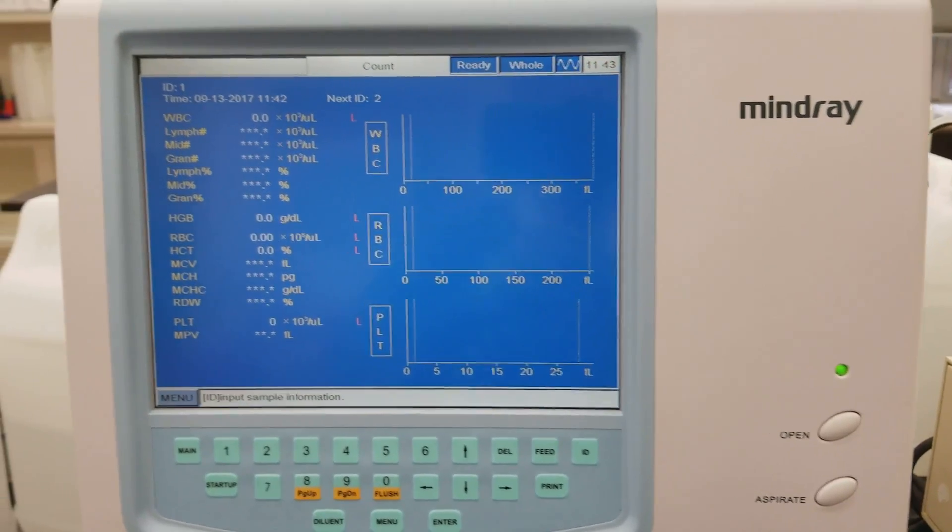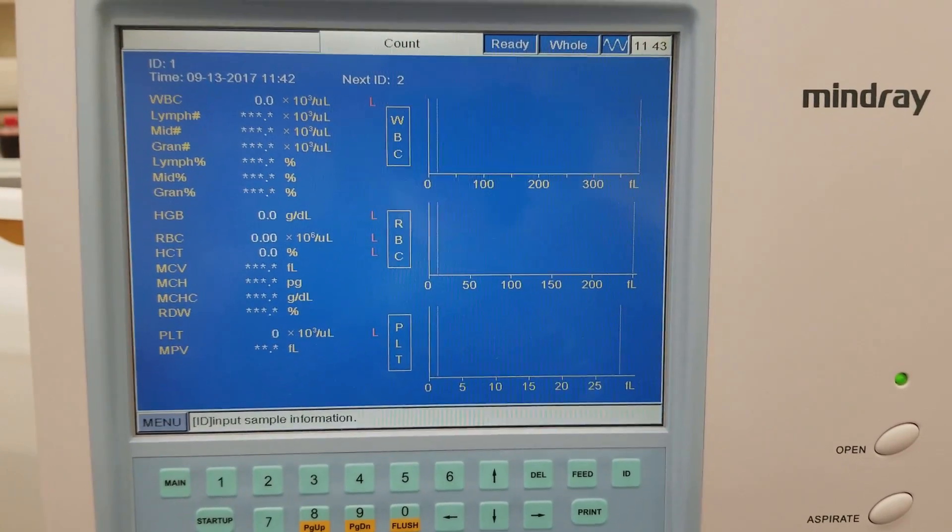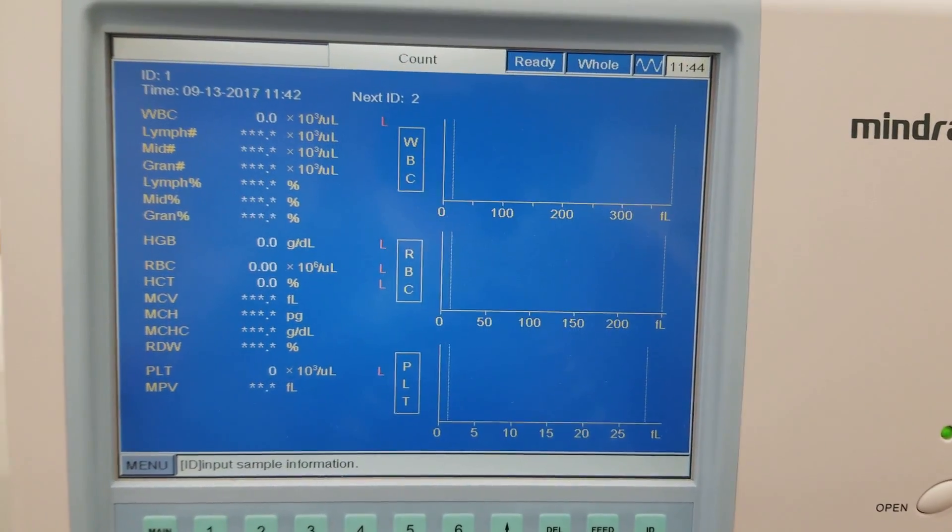Welcome back. This is another video on the MindRay BC3200, our automated CBC analyzer in class.